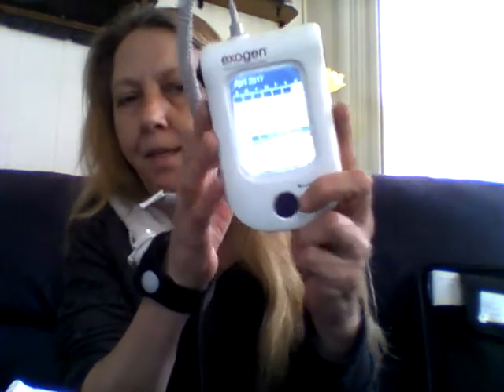You can see the calendar on the device — and there it starts counting down. So I don't have to keep track of the time or watch the clock. I can just set this thing down now and have a cup of tea and watch a show.